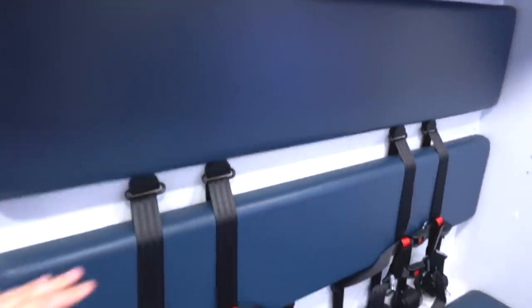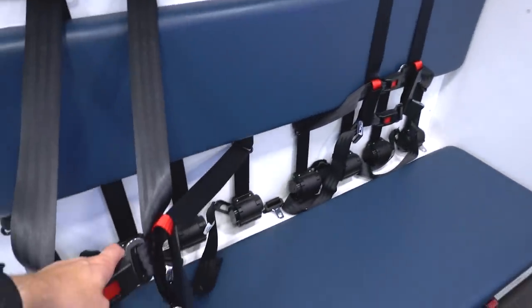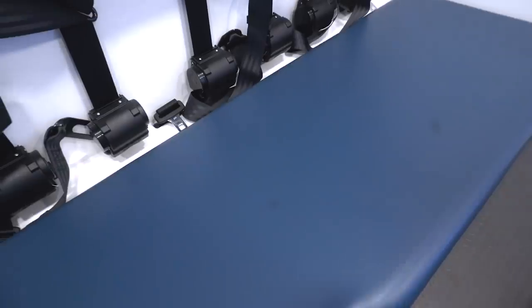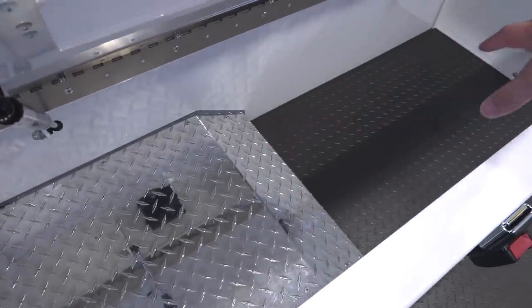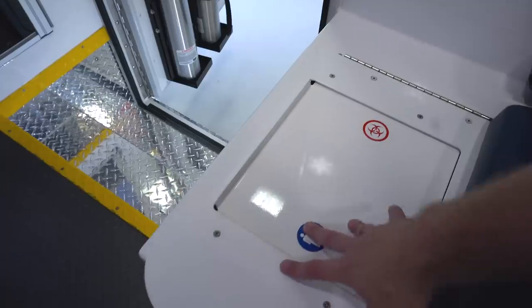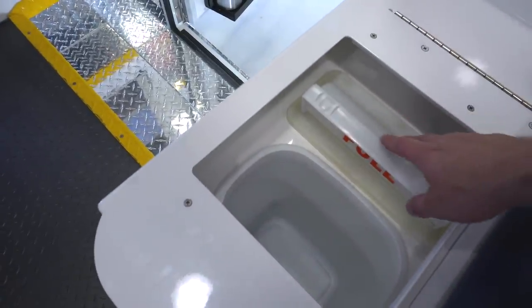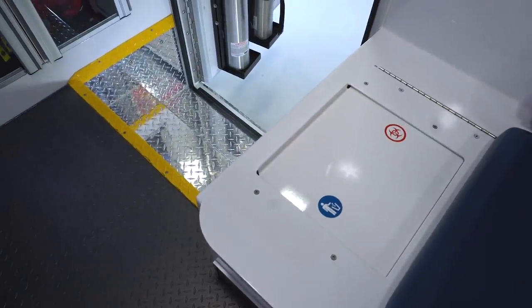The bench seat itself has two six-point harnesses, which allow you to sit in and still get a little bit of motion to do patient care. Below the seat, there's actually a ton of storage — more than I've seen in a lot of other ambulances. The wheel well is there, but it doesn't take up a whole lot of space, and you can keep any number of supplies or bulkier items in here. On this side, you've got a sliding door that gives you access to your trash can and sharps bin, and when you pull the bench seat up, it exposes both of them for easy changing.